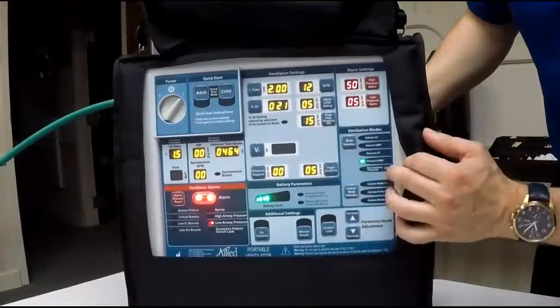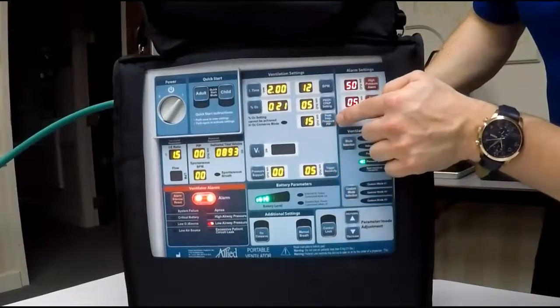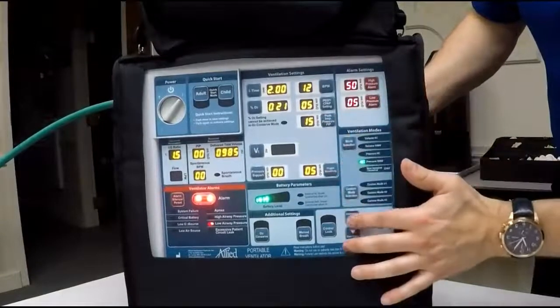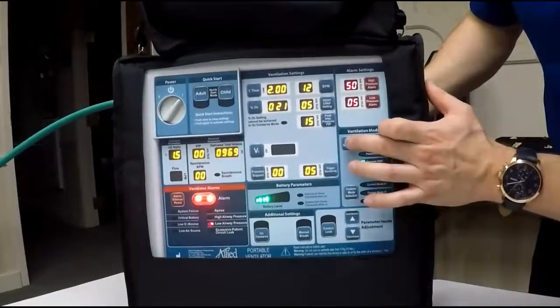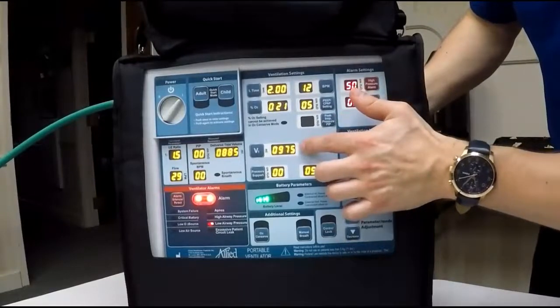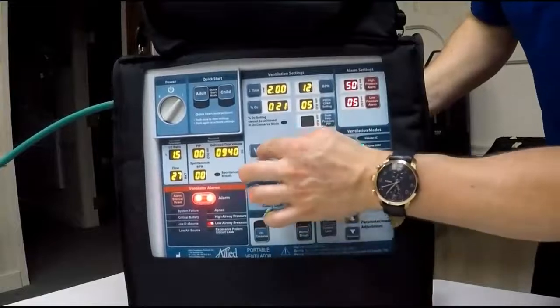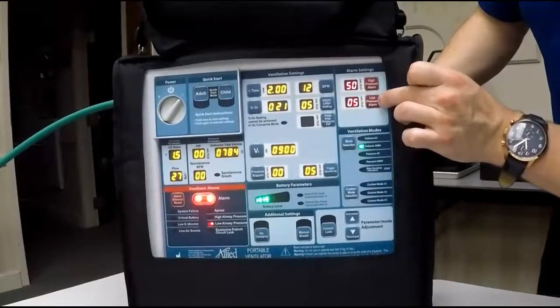You'll notice here we're in a pressure mode, so you can dial between your peak inspiratory pressure, your PIP, and not your tidal volume. If you want to dial between tidal volumes, you're going to go to either a volume SIMV or a volume AC mode. Change that to volume SIMV, peak inspiratory pressure goes away, and then you have a tidal volume only available. And from there you can dial.